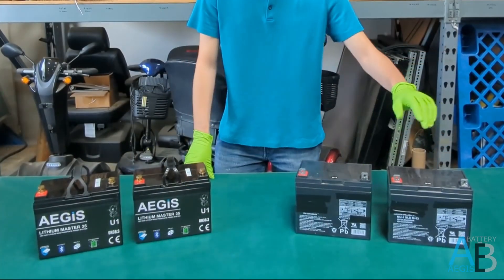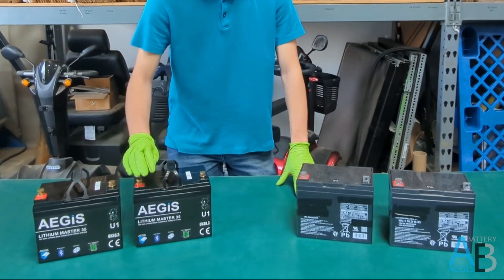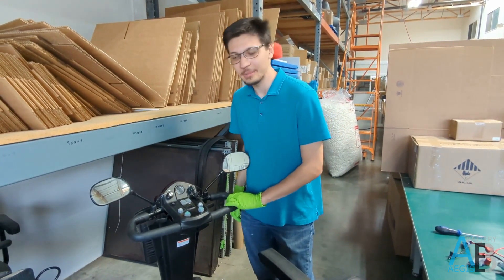So if you have an old 12-volt lead acid battery, you should replace it with a 12-volt lithium battery. If you haven't done so already, the first thing you'll want to do is unplug your charger from your mobility scooter, and then check the battery meter.